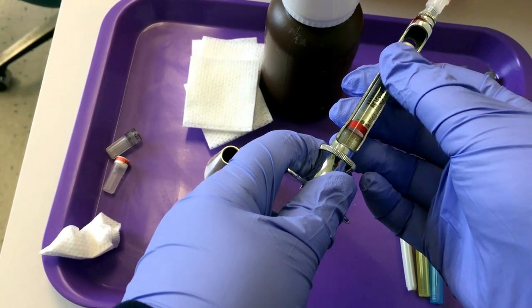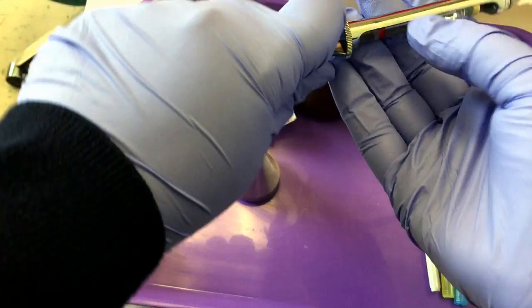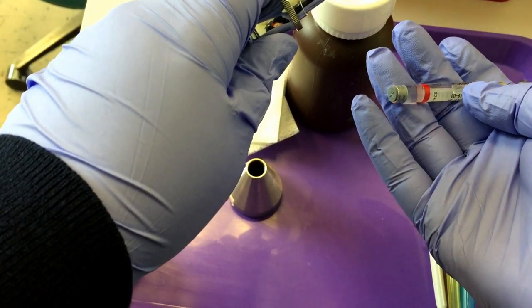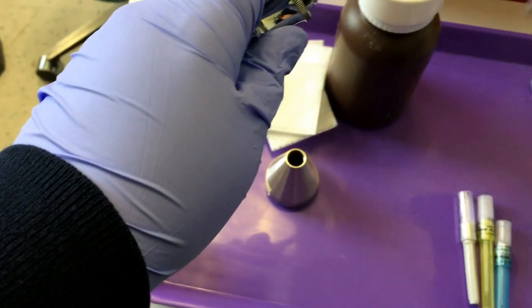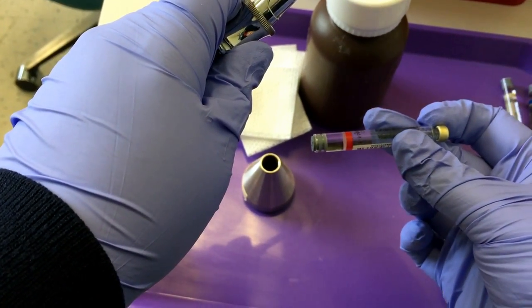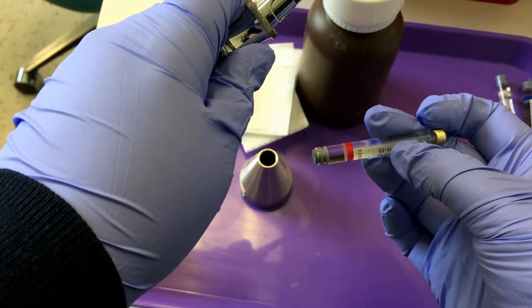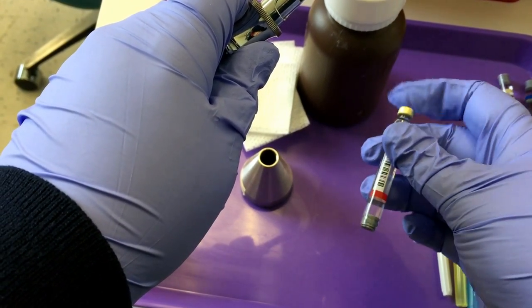Use your thumb to slide it off the stylus, tip it out, and this will go in the sharps container. We typically keep these on the treatment tray so we can record how many and what type was given to the patient.